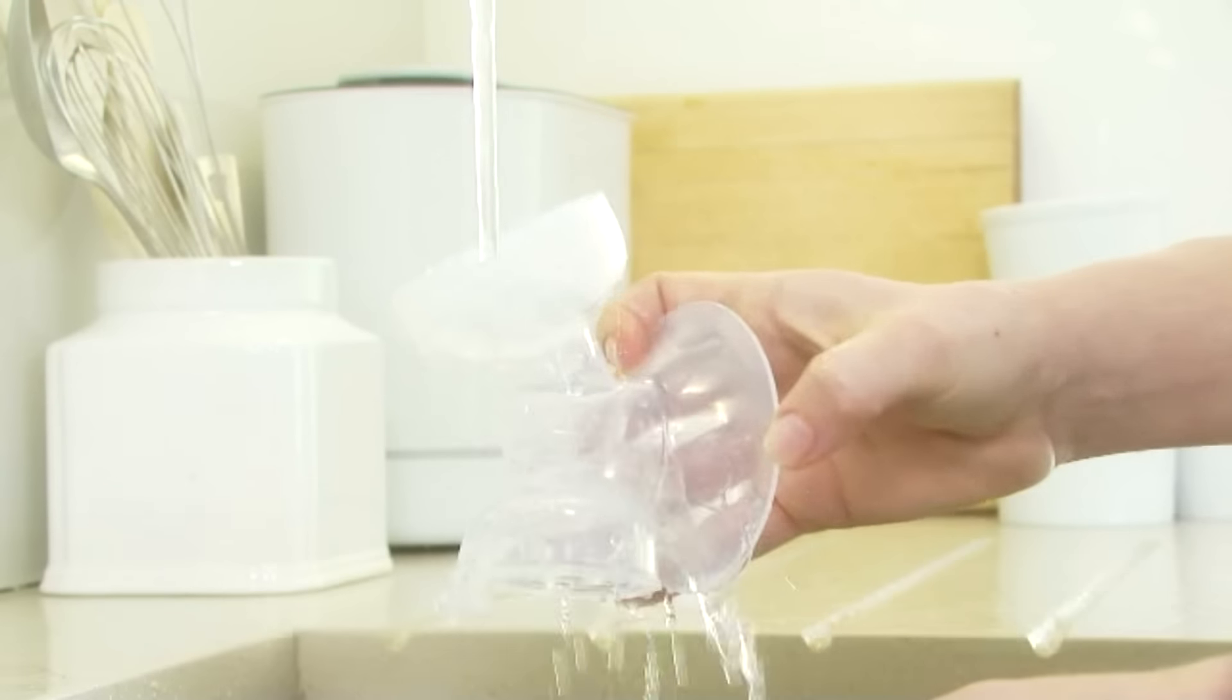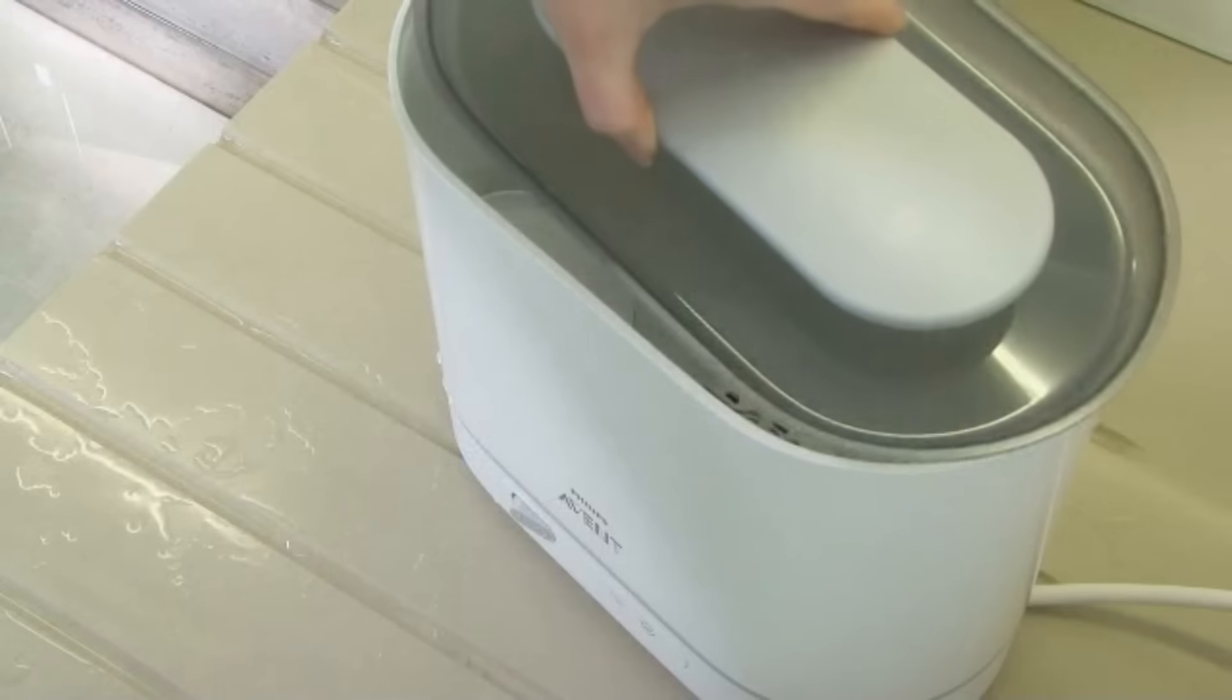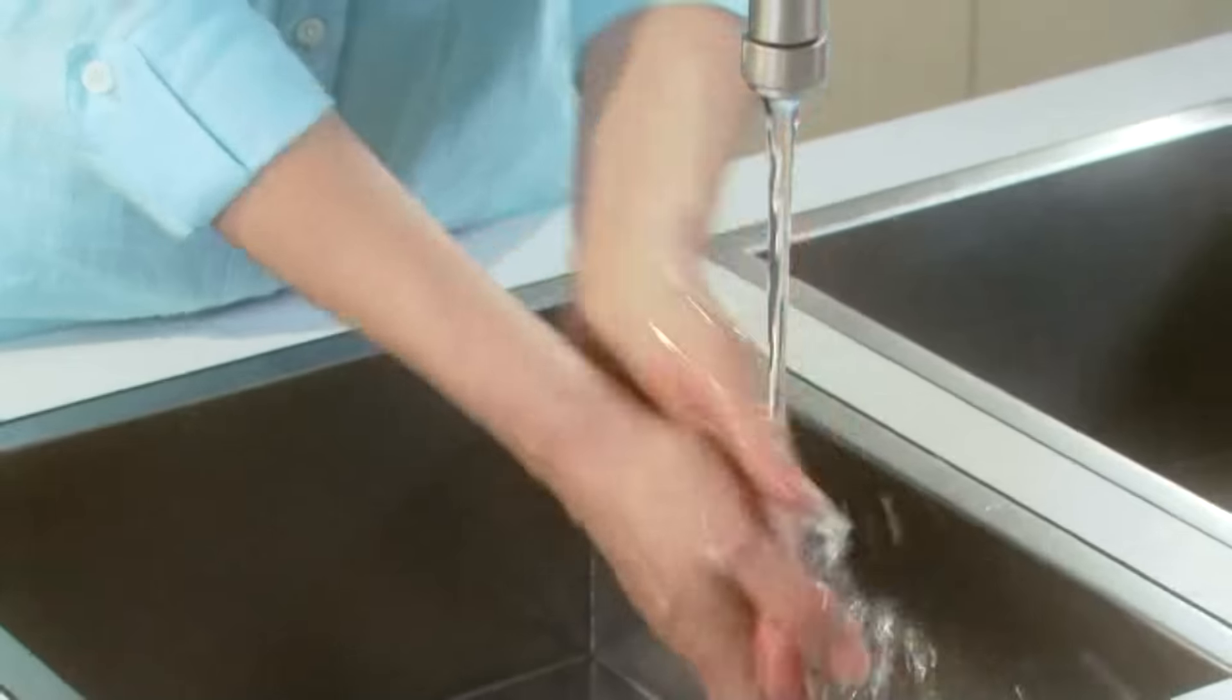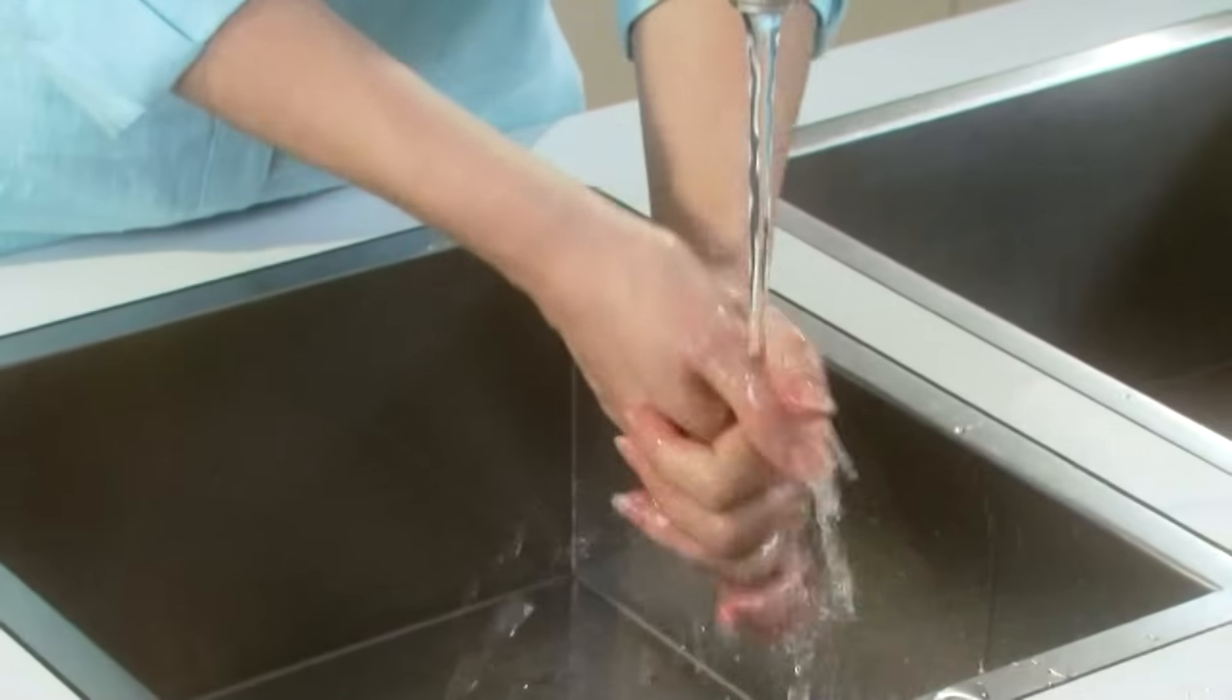Before you start, make sure you wash, rinse and sterilize the non-electrical parts and wash your hands thoroughly before you handle the cleaned parts.